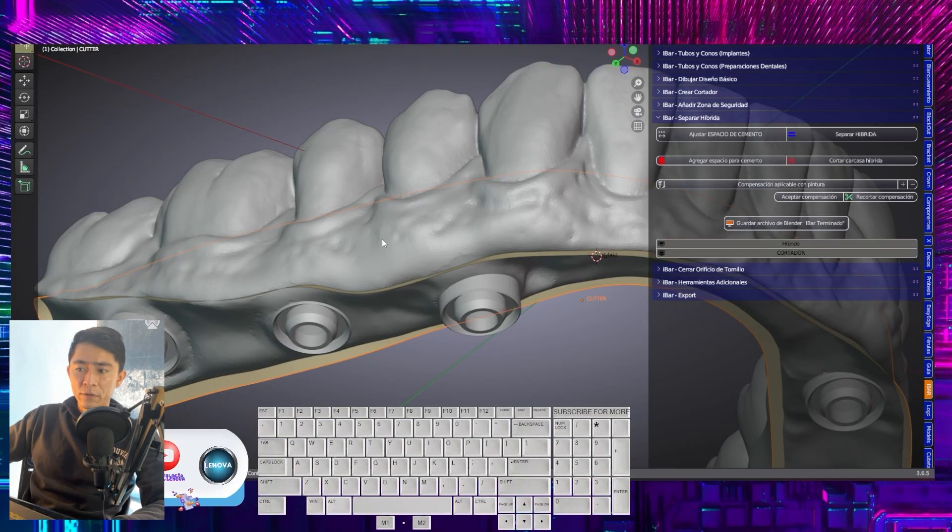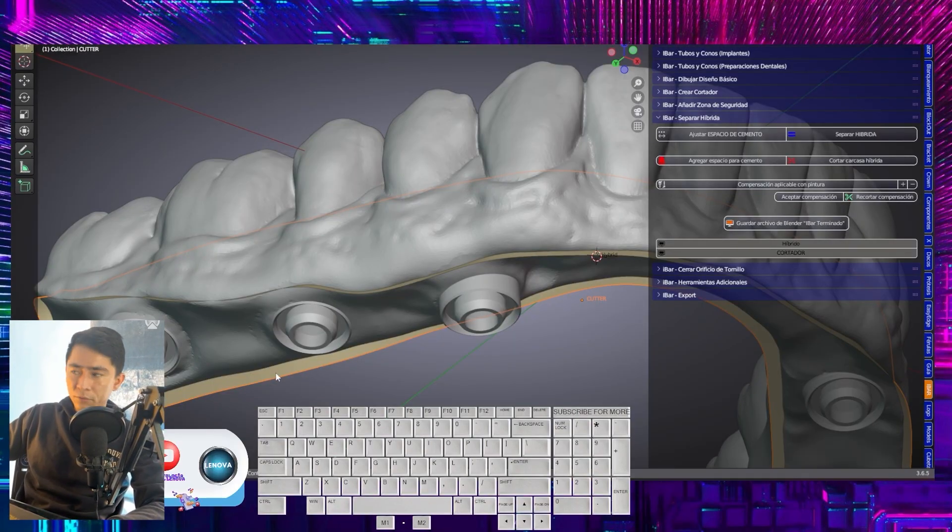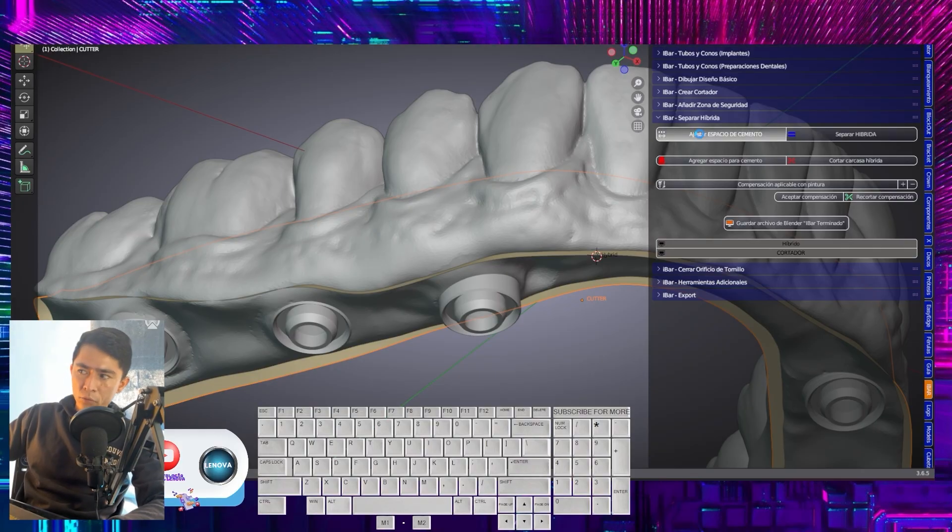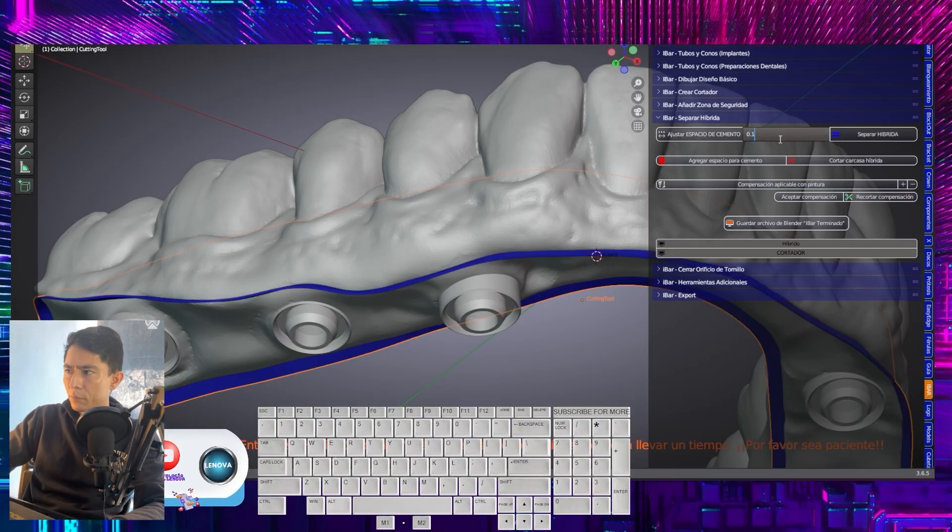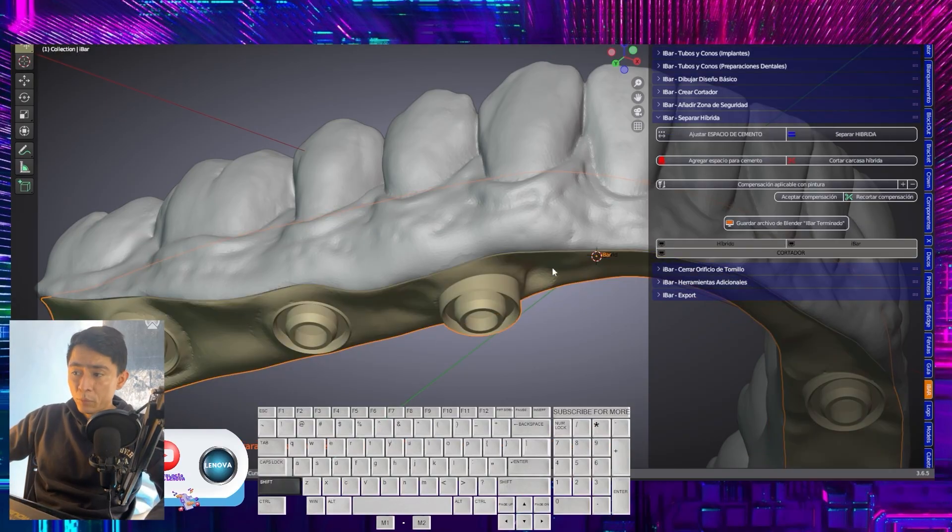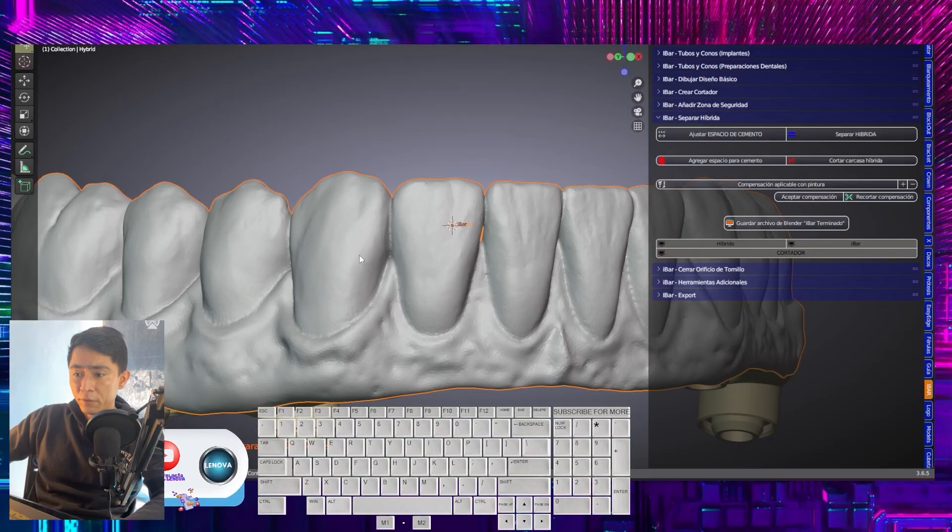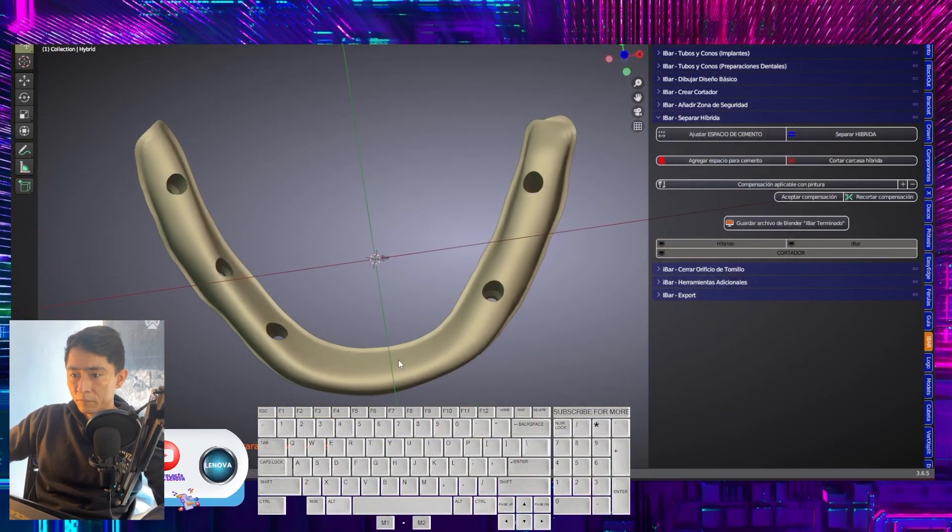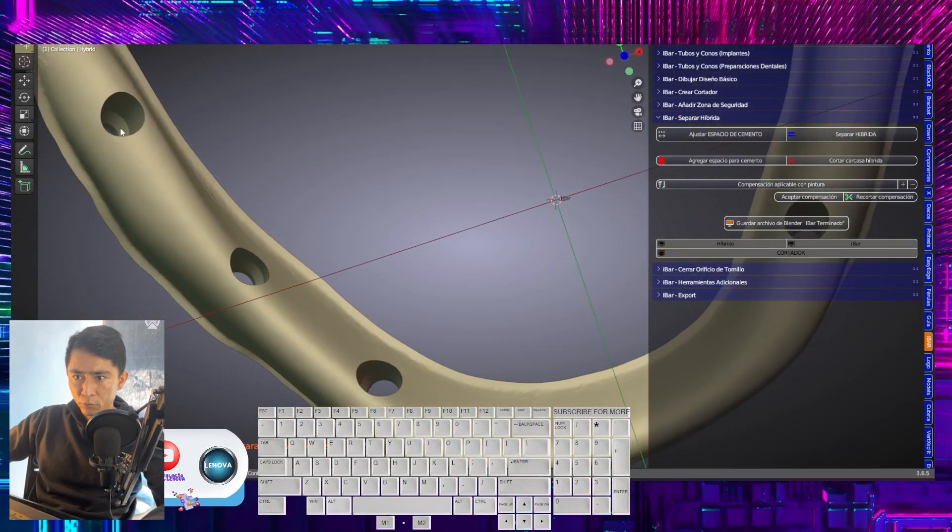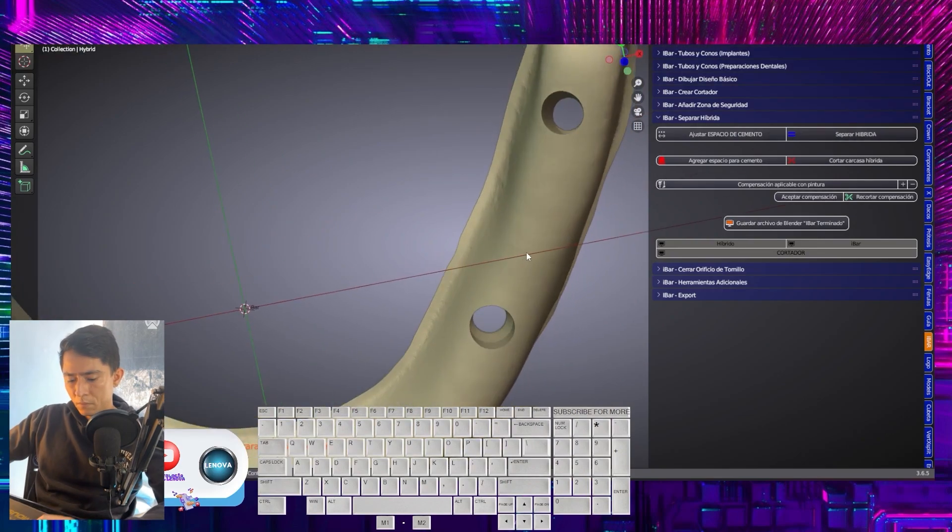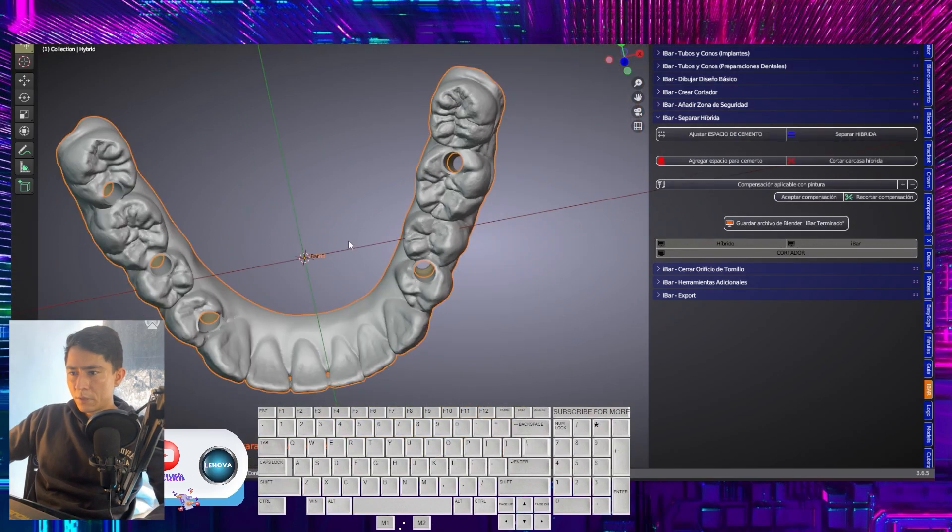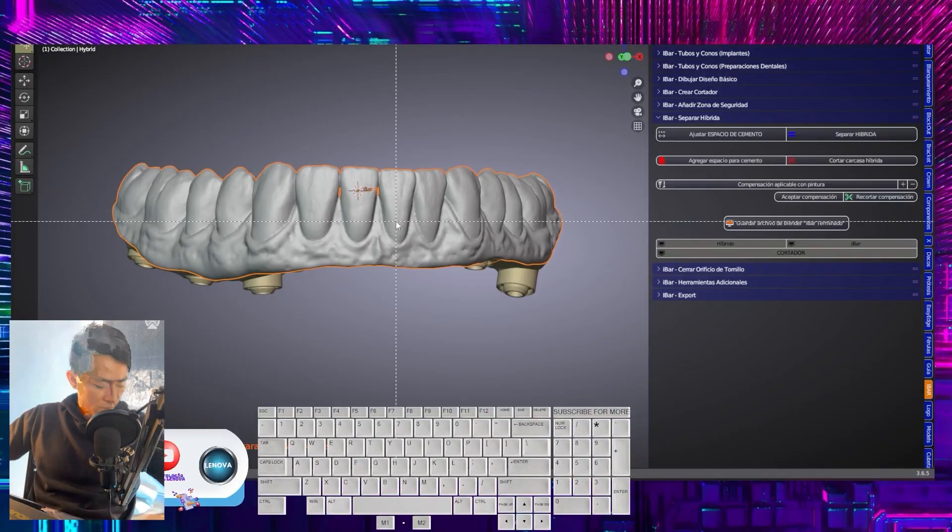So what we are going to do is the following. Just as it is, you will notice that this is the trace we are selecting. We set it to adjust. Here we will leave a thickness of 0.1. For me, that is more than enough. At that point, we already have the division of our two structures. Notice that they are impeccable, not sealed.